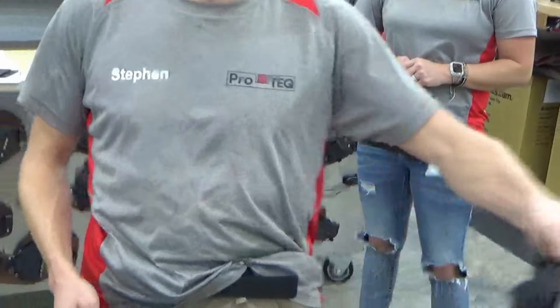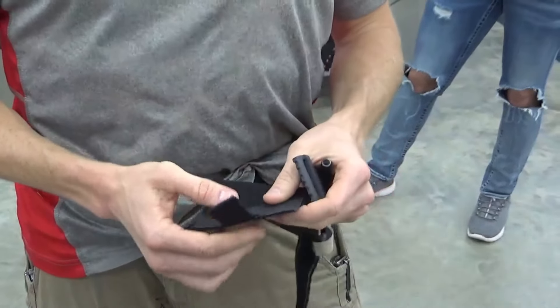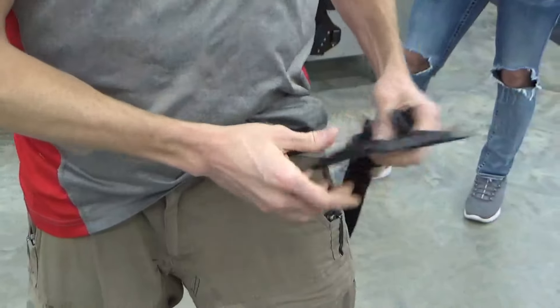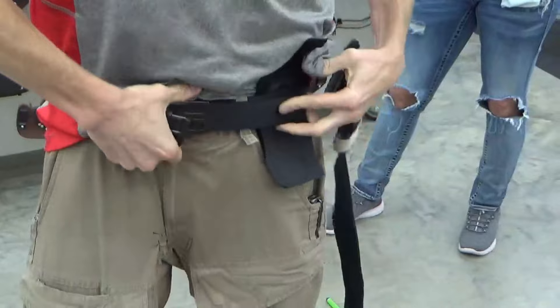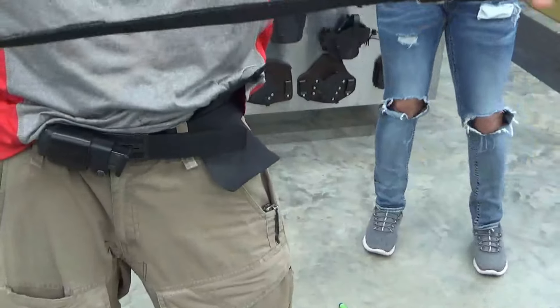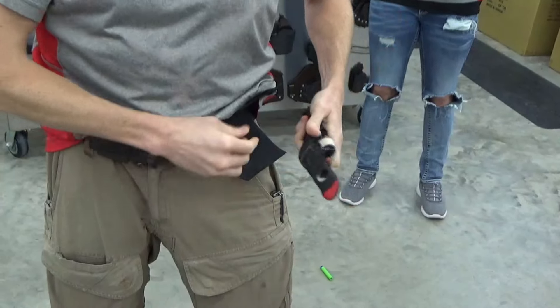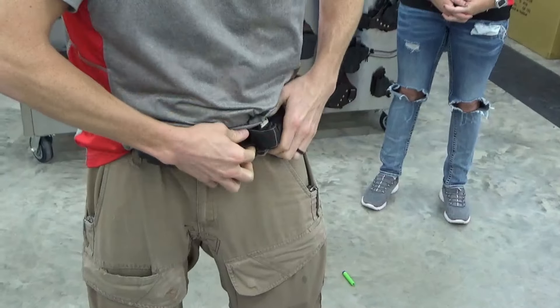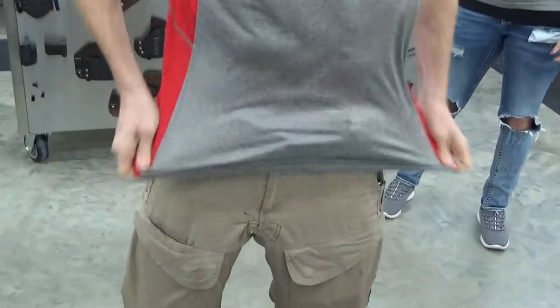Here's what it looks like brand new. We used hook and loop fabric — it's mold, mildew, and UV resistant. We stitch a polypropylene tab to it to give you a little pull tab. It's very simple. It just goes behind the belt like that. Take your tourniquet and you can carry it. I like to do the accordion method because you never know what appendage you're going to be putting it around. I found it a little faster through repetition to use this method versus having it pre-looped, but that's just personal preference. And that's how you carry it.